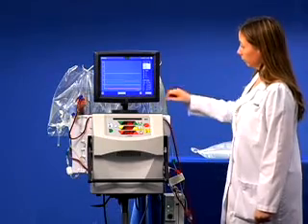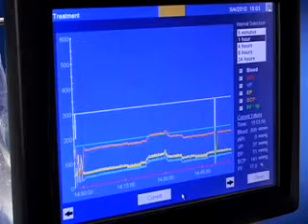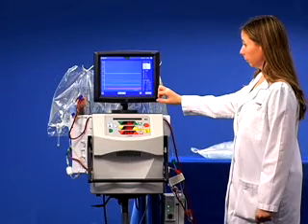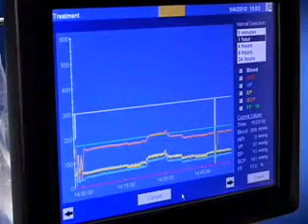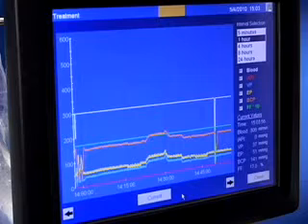Look at the blue line. If no access clotting is indicated, then verify that filter clogging or clotting is occurring. The venous pressure will decrease if there is filter clogging or clotting.